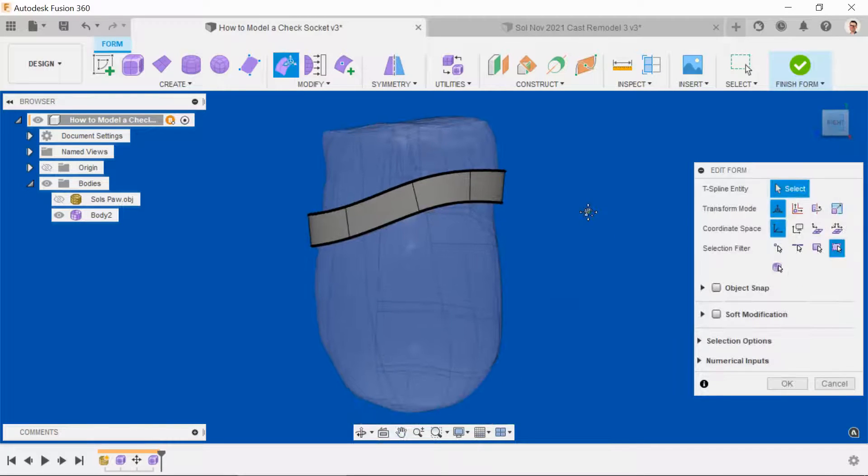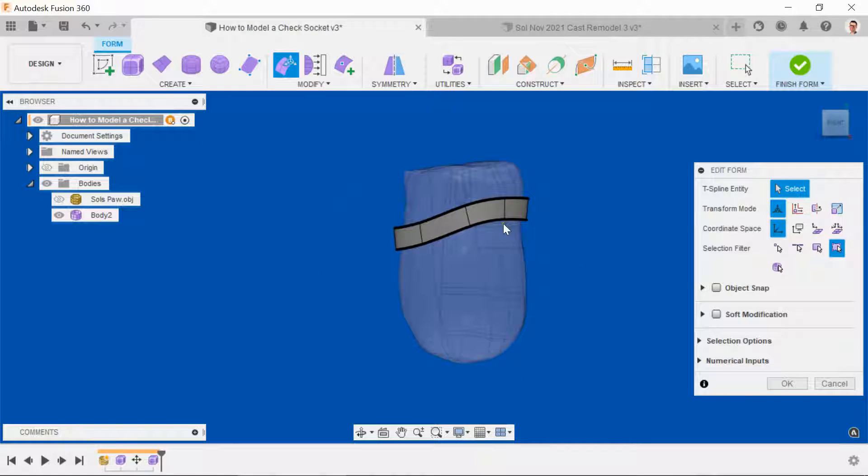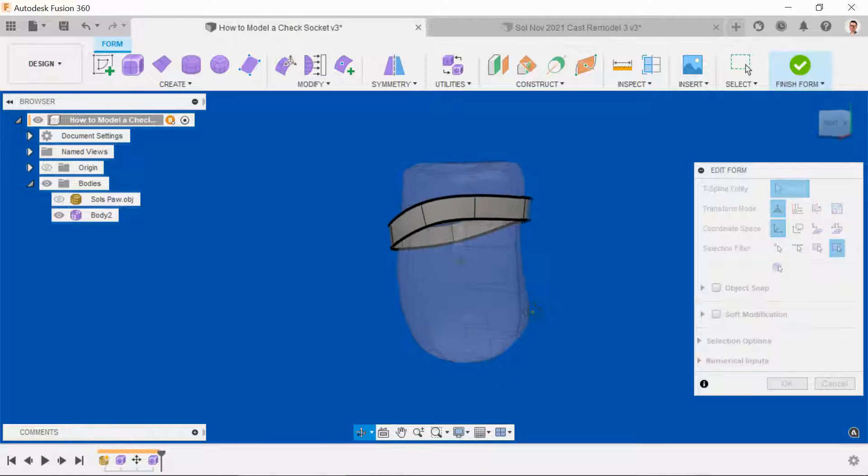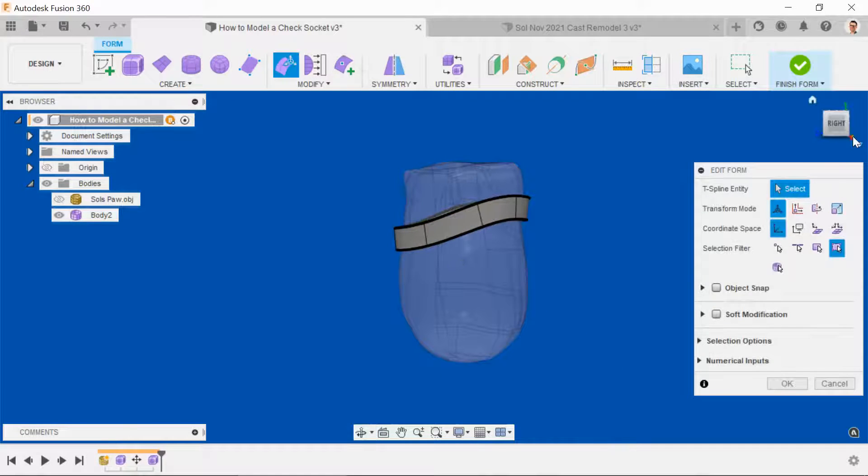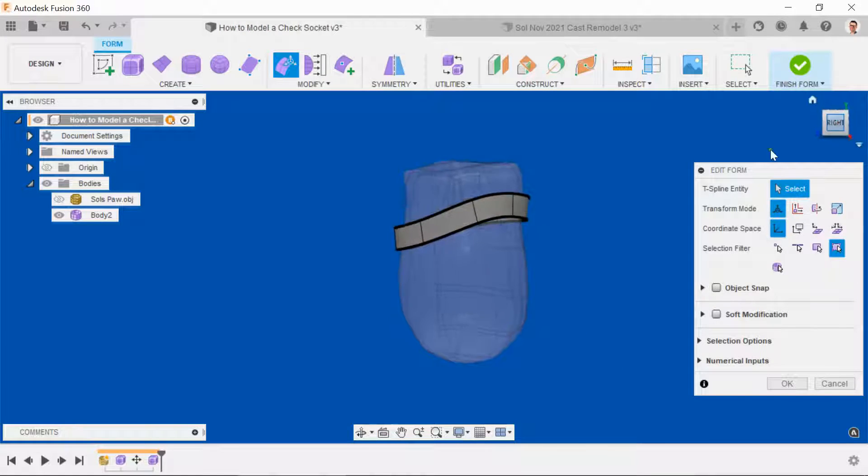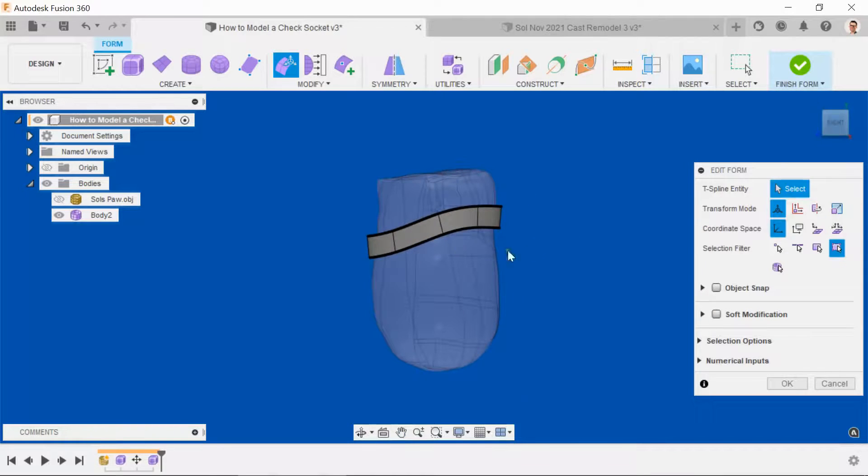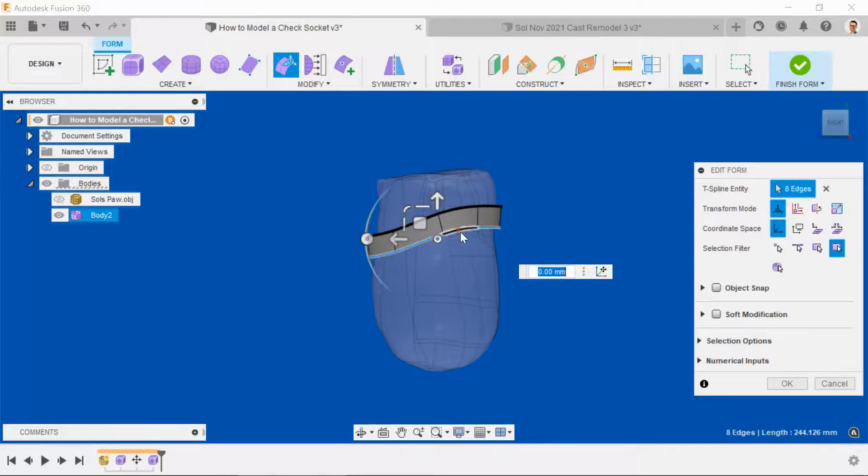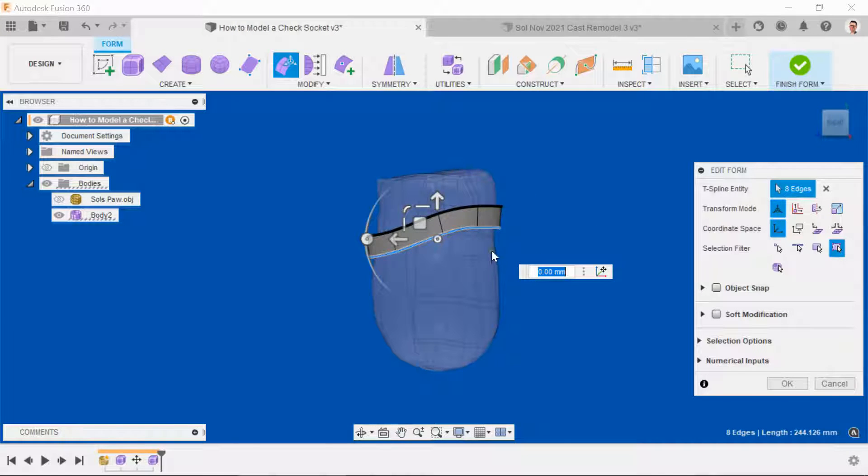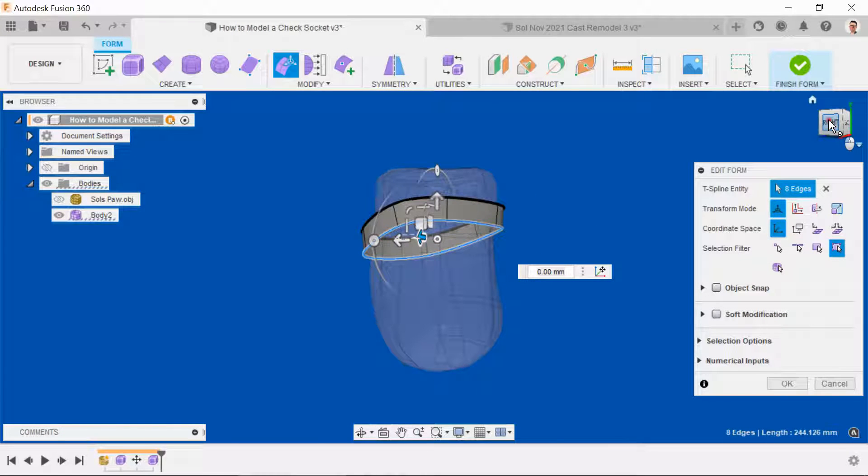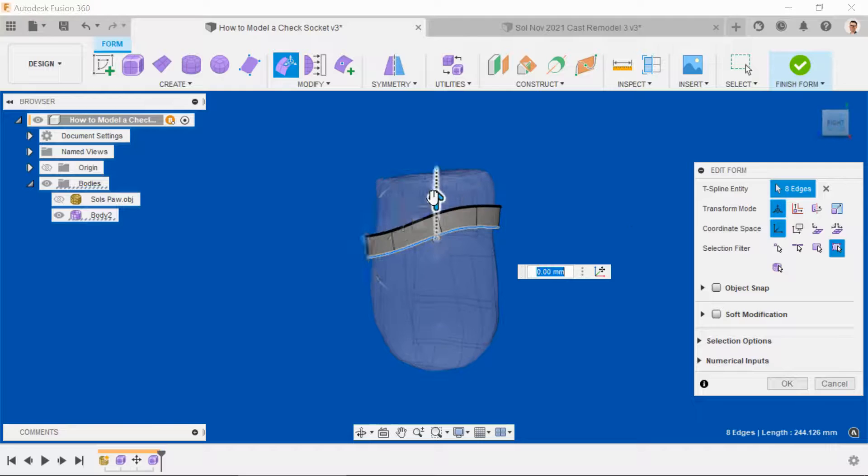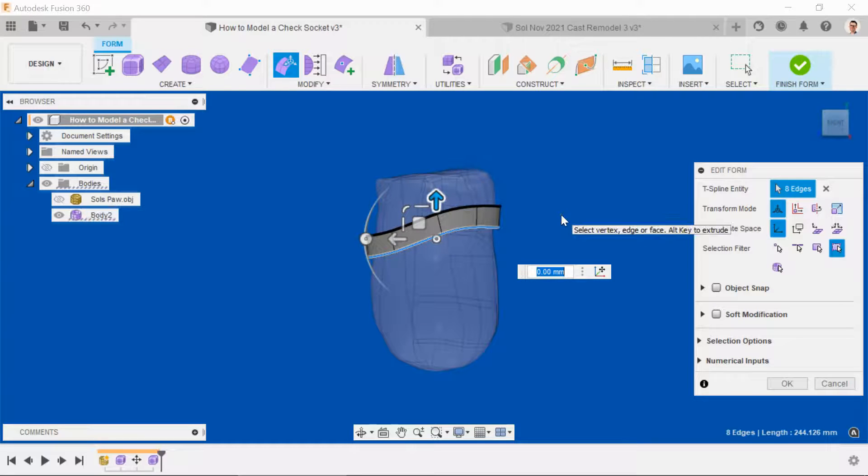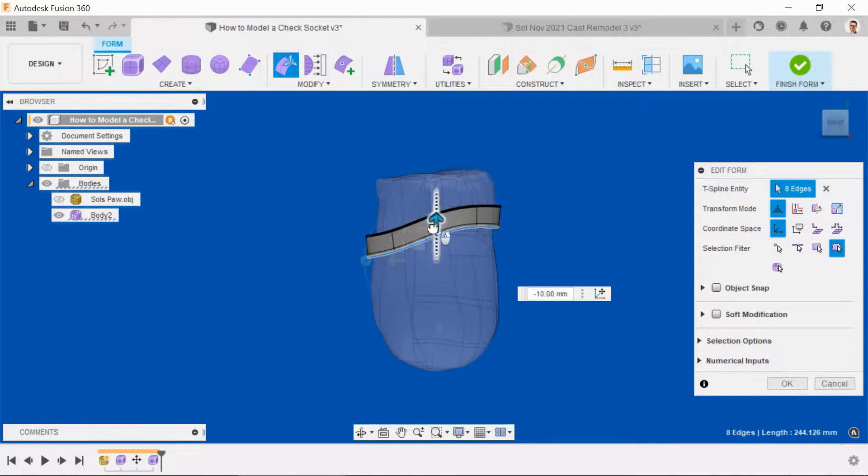The next thing we want to do is to bring additional rows of geometry down to the bottom of the stump when we're going to close it up and then start checking our work for gaps and overlaps. So to do this, what we need to do is highlight the bottom edge. Just check there that it's all highlighted. Select the arrow button, press Alt, and then pull down.